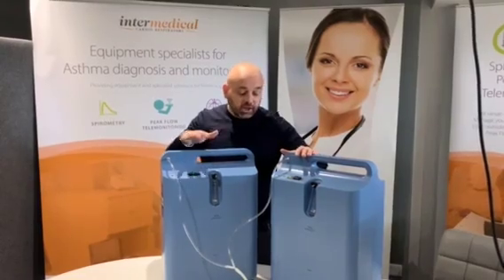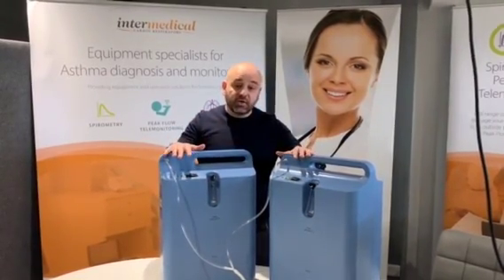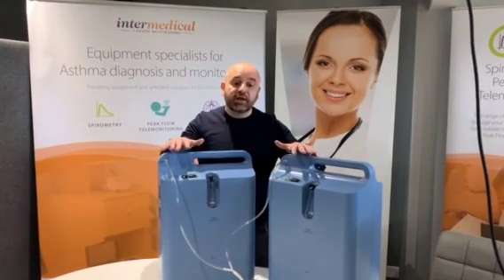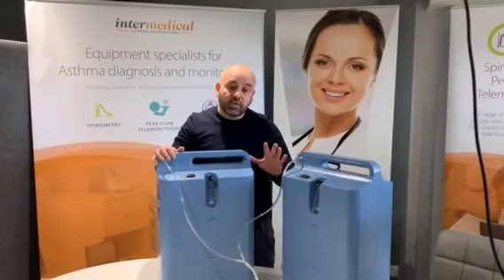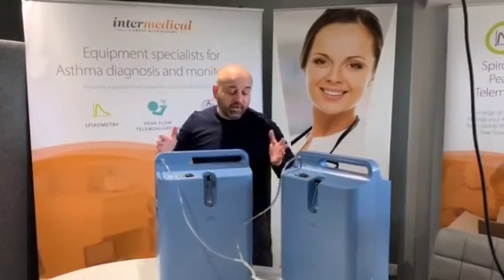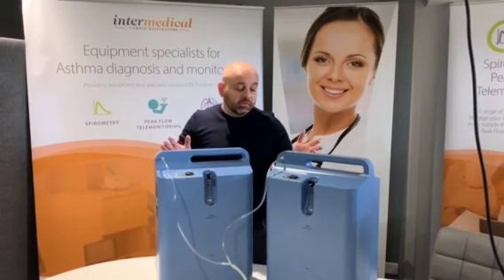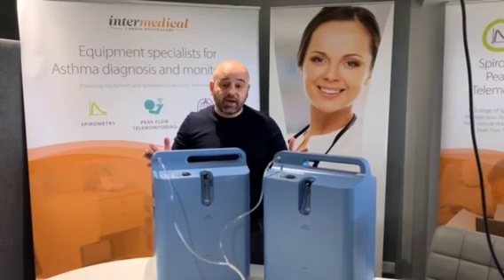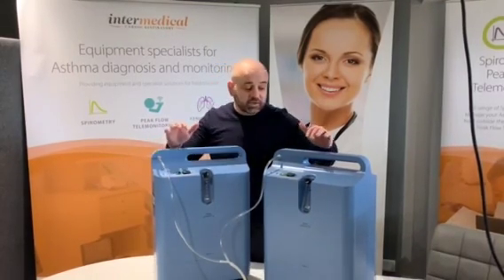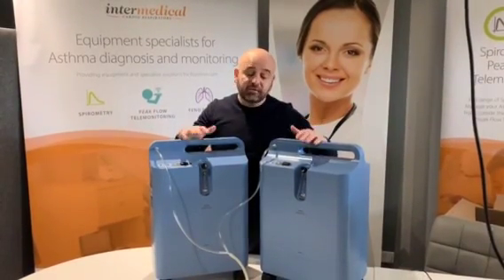Using two machines, the good thing is that those two machines actually have lower noise, lower heat consumption, and lower power consumption than 10L units. Also, if anything goes wrong with one of the two units you can just swap and replace with the second one. So there is no real need at the moment to be looking for 10L units — they are very rare to source — when you can source two 5L units at approximately the same price as a large 10L unit, supplying up to 10L.